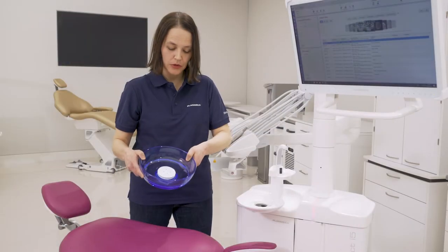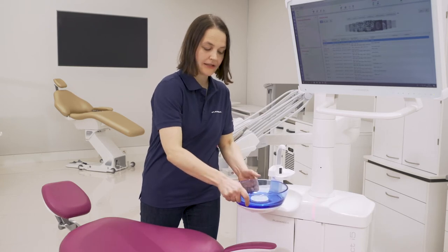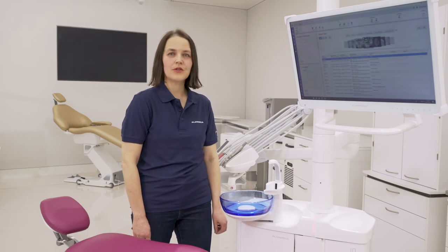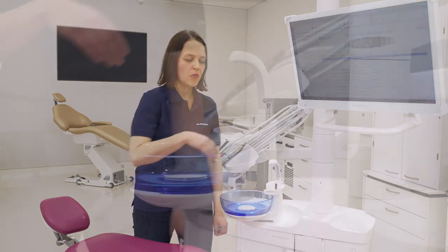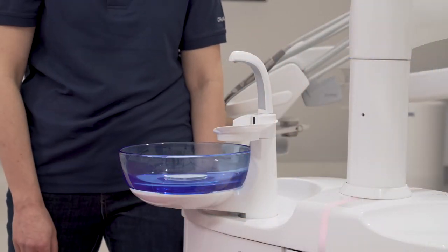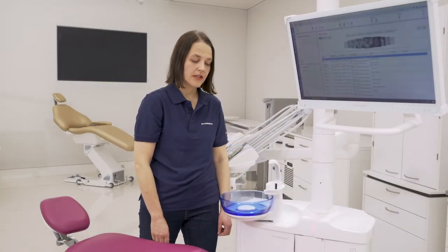When you want to put it back, put it in place and rotate. If you don't use the bowl or you use it very seldom, we recommend that you consider removing the whole bowl assembly completely for infection control reasons. You can ask your technician to do that.